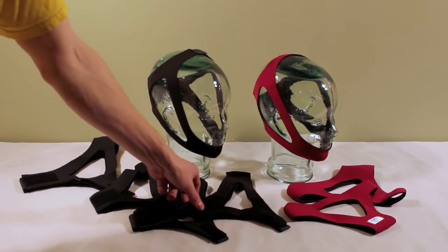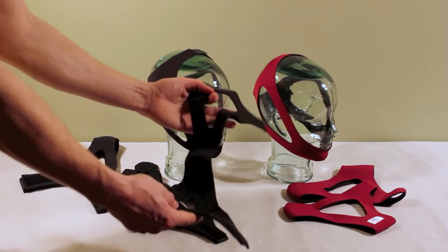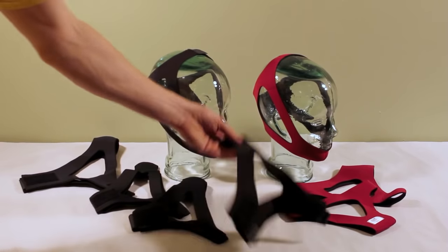In addition the sunset adjustable chin strap velcros at the top of the head and the back of the head as you can see on this glass head.